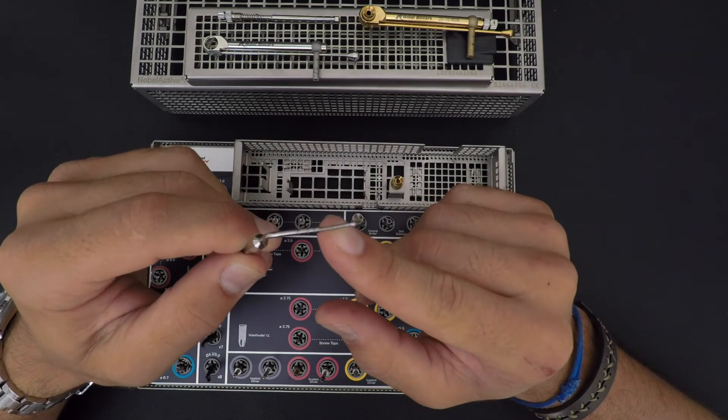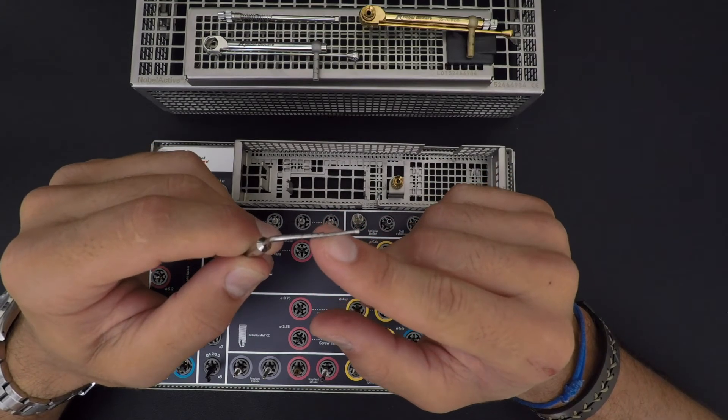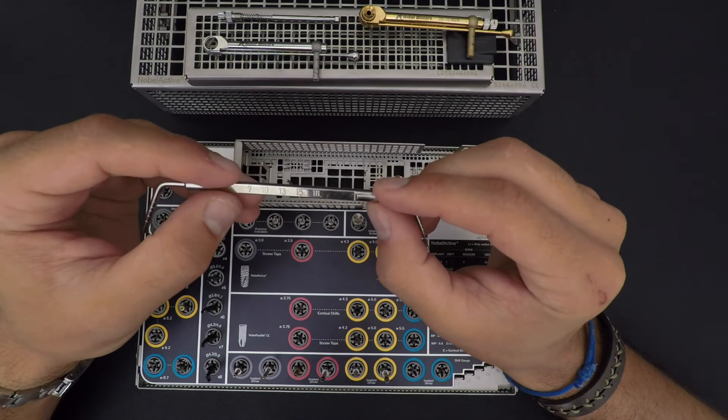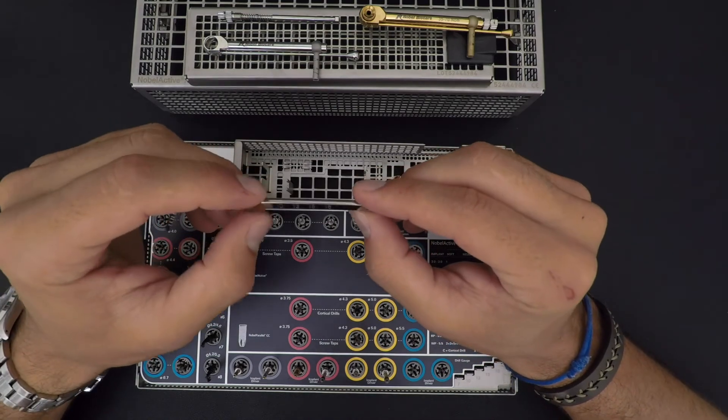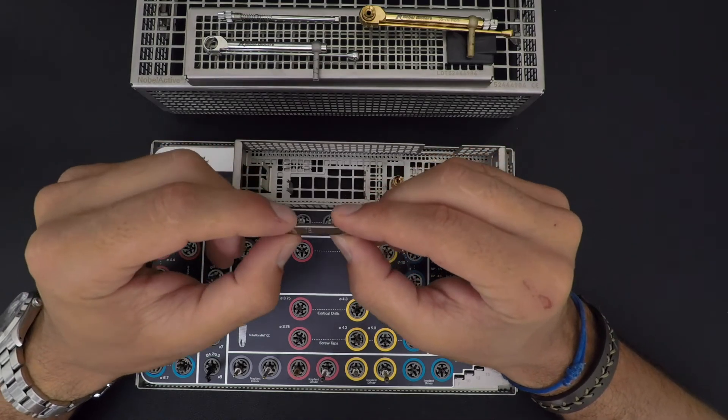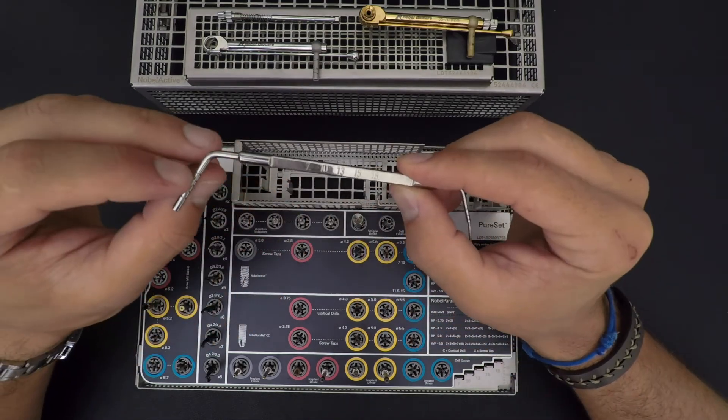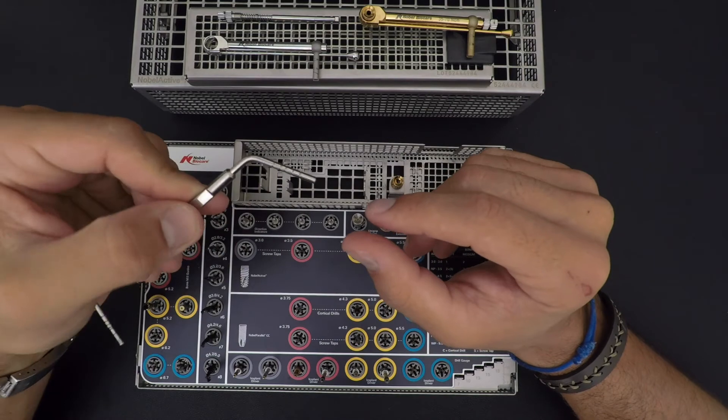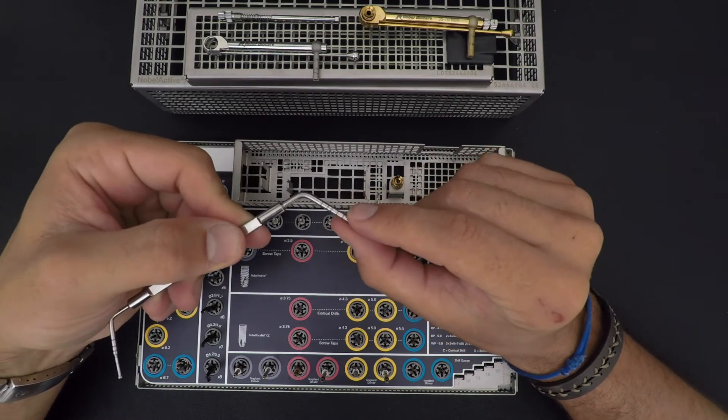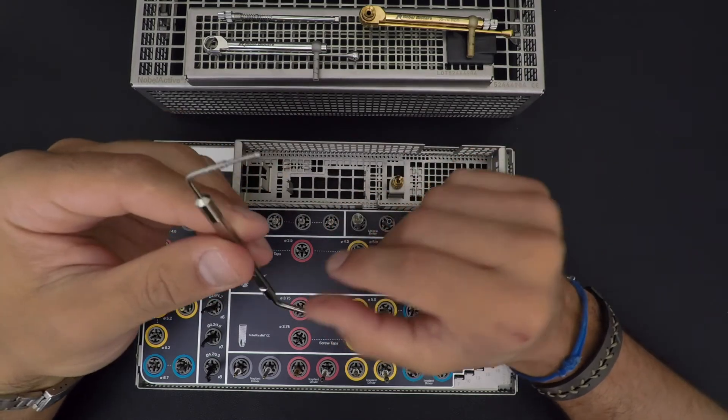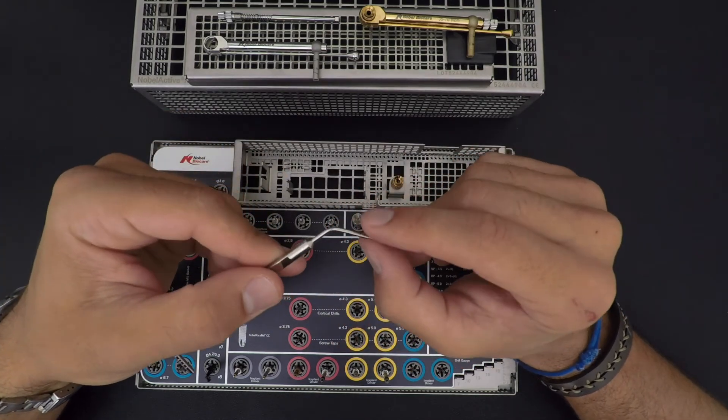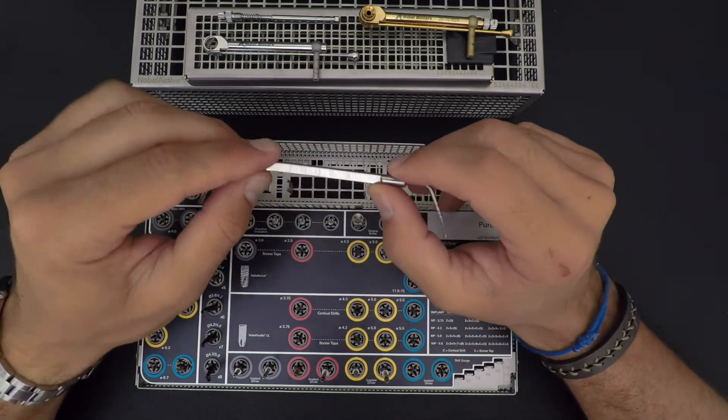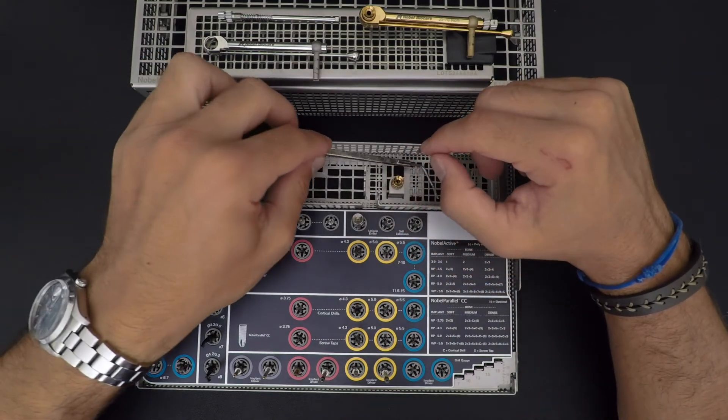One, two, three, four, five marks, which is 7, 10, 13, 15, and 18. You got one side that is a bit thicker than the other, depending where you are in your preparation of the site.